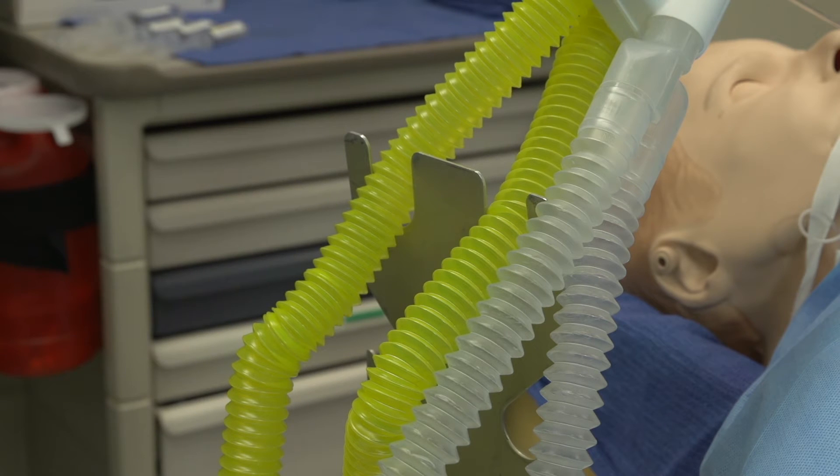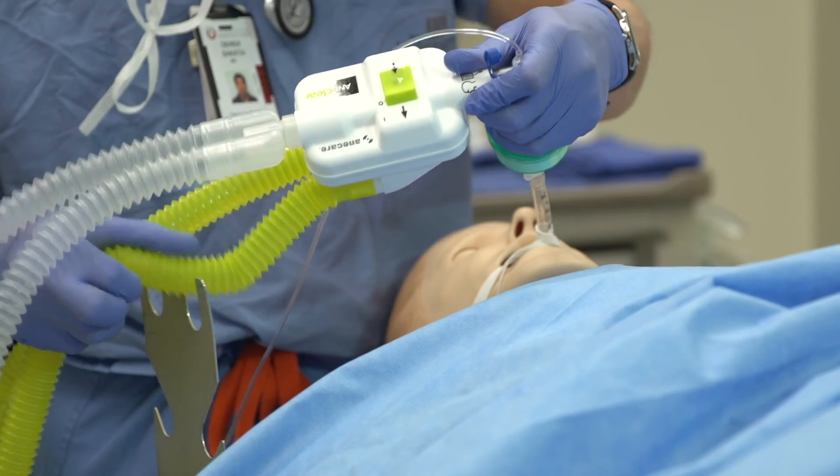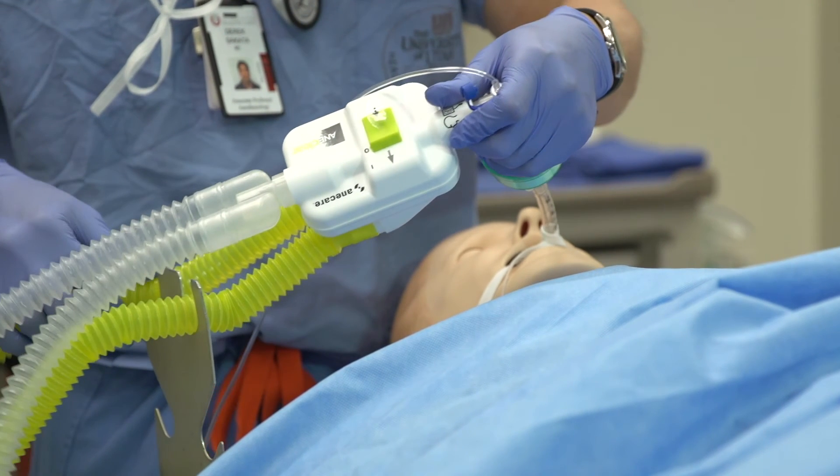While weighing only 6.8 ounces, supporting AniClear with an airway circuit holder will relieve strain on the connections to the LMA or endotracheal tube. Use the adult sized slots on the tube tree, since the smaller diameter pediatric slots can slice the AniClear re-breathing loop.